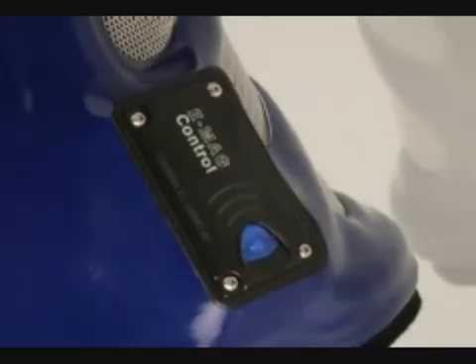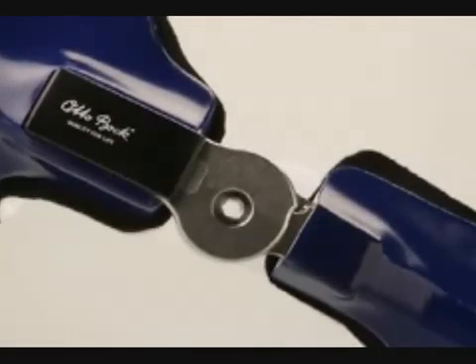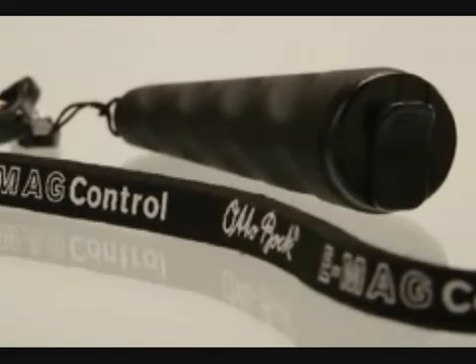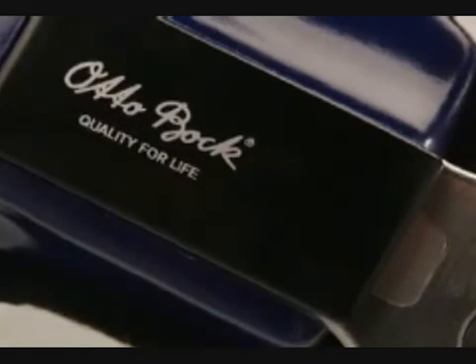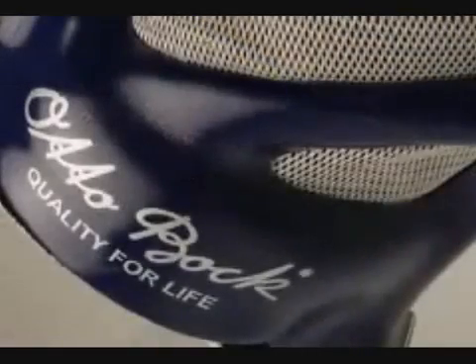The electronic control of the E-MAG control knee joint system opens a new chapter in orthotics. This latest generation of orthotic components features a control function that significantly enhances patient comfort and safety. An innovation by Otto Bock, the medtech company — innovation that builds trust.